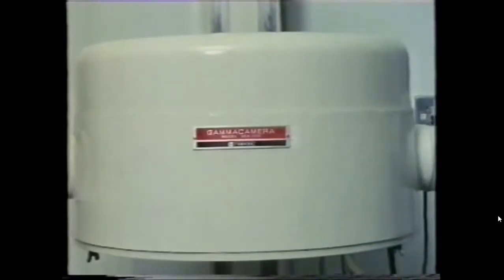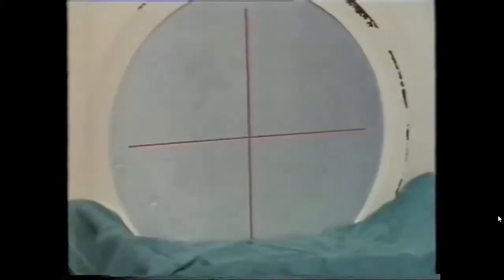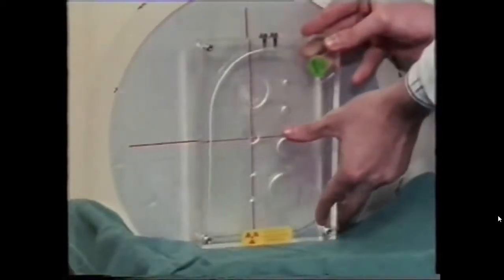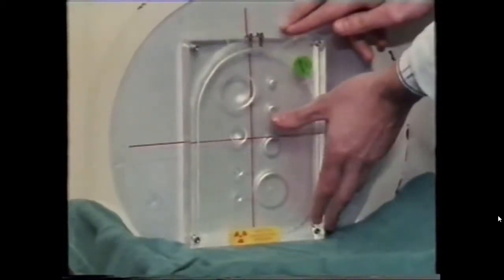Although it's called a gamma camera, it doesn't work like an ordinary one. To demonstrate the gamma camera, we can use a plastic box shaped so it contains varying amounts of radioactive liquid.